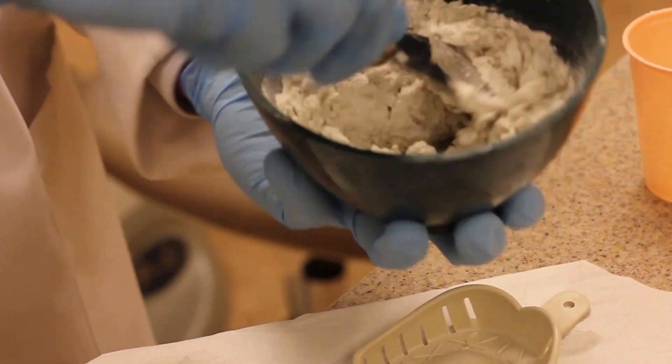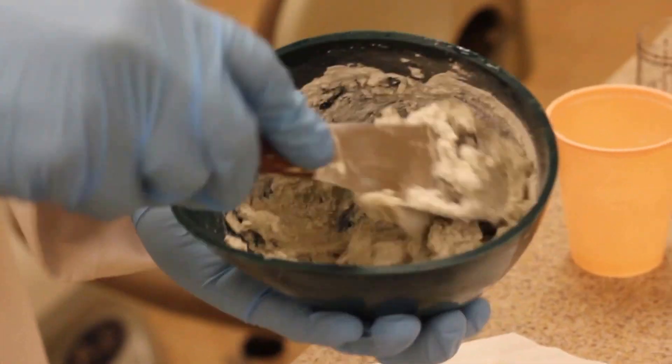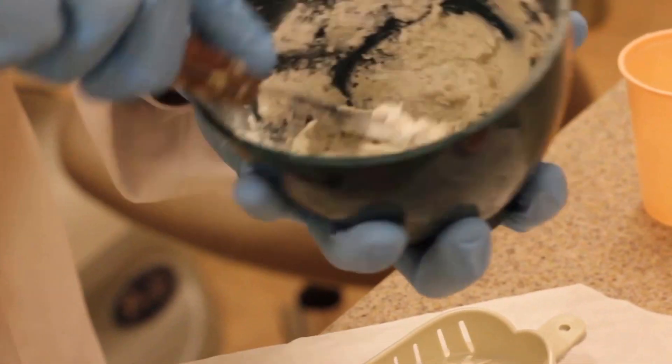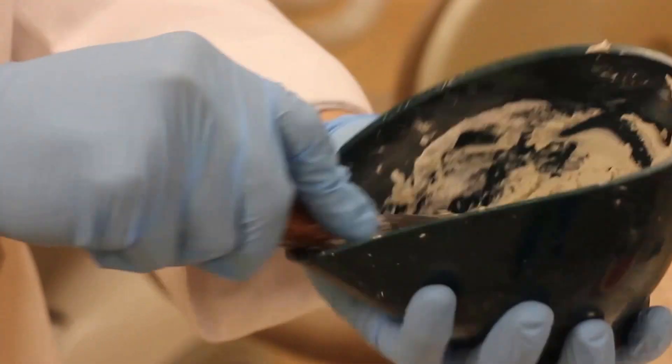Initially I like to mix slowly just to get everything to congeal together. And as it kind of clumps, then you can really vigorously mix and push against the bowl.